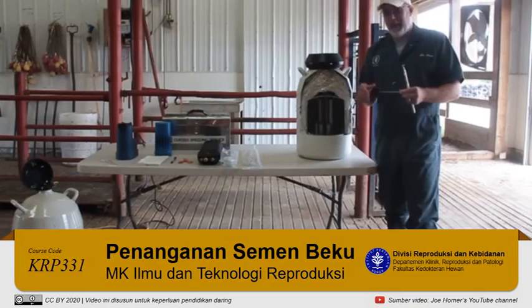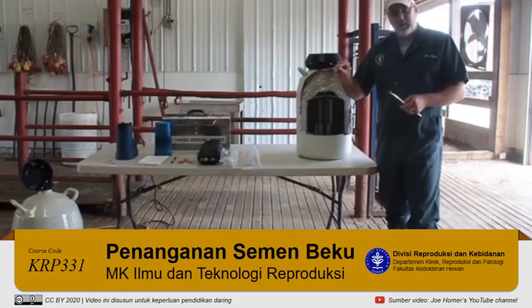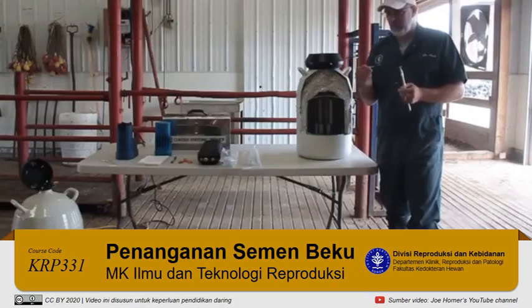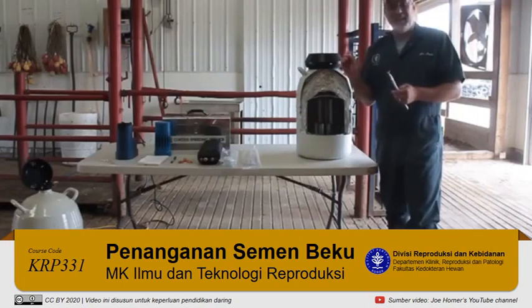We're going to be talking about handling semen and thawing it for use in artificial insemination. What we have here is what we call a straw or a unit of semen. On each straw is a number which corresponds to the particular bull you're using. In this instance, this is Basin Trendsetter. His code number is 237 — that is the AI stud code that collected him. He is a Red Angus bull, so it's 237AR, and his number at the AI stud is 1149.